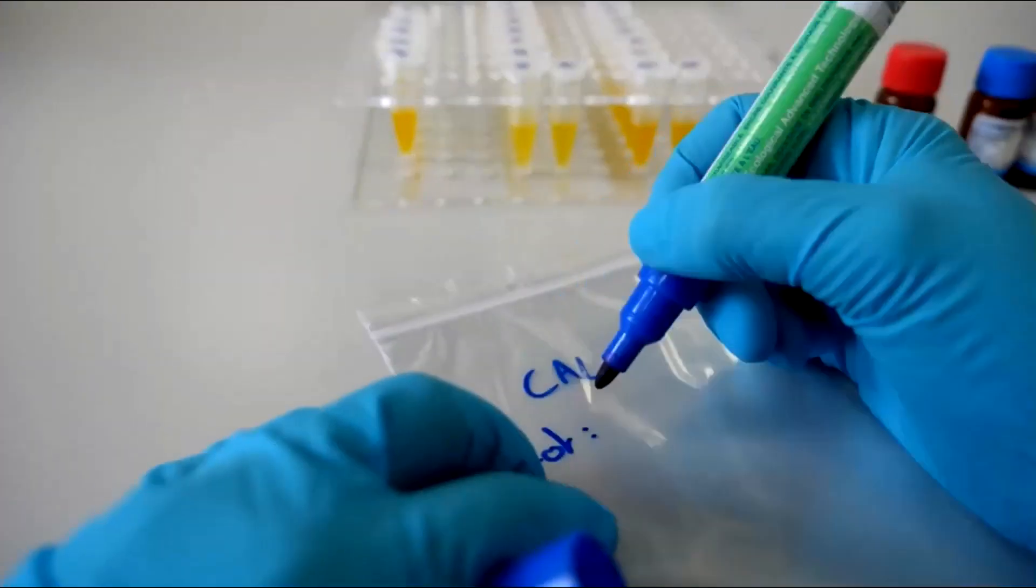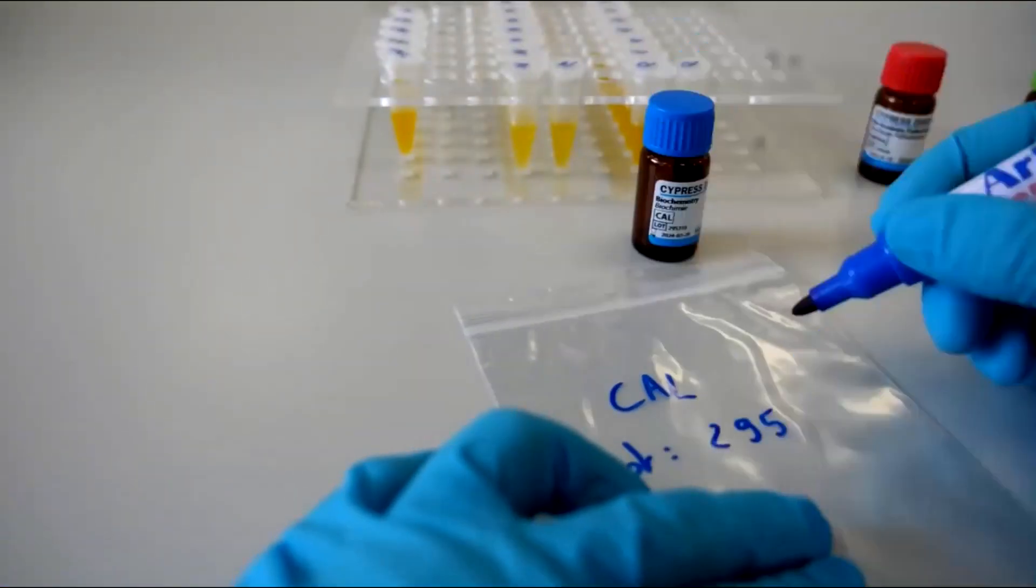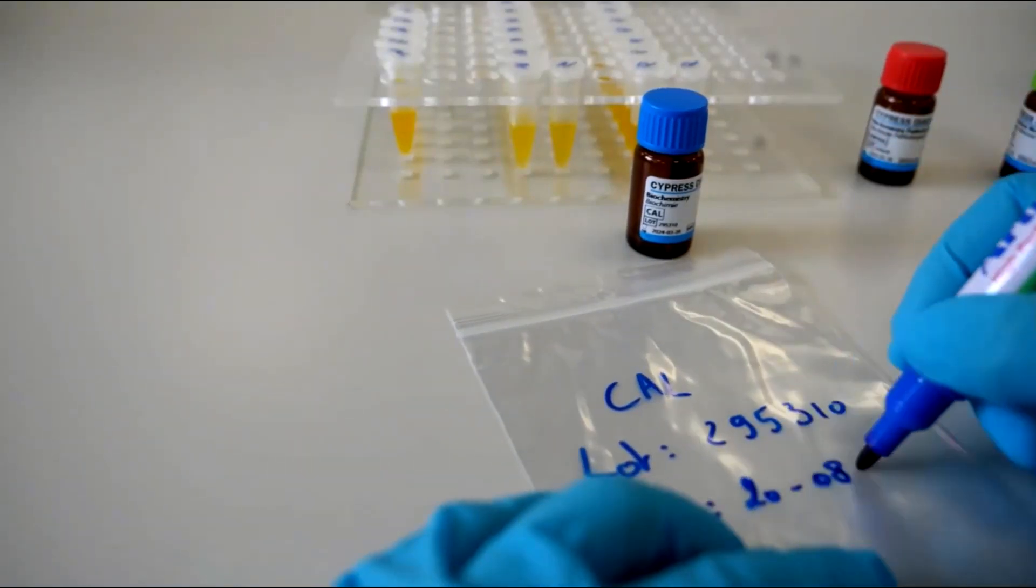Take a Ziploc bag and indicate the reference, lot number and stability period of the aliquot.